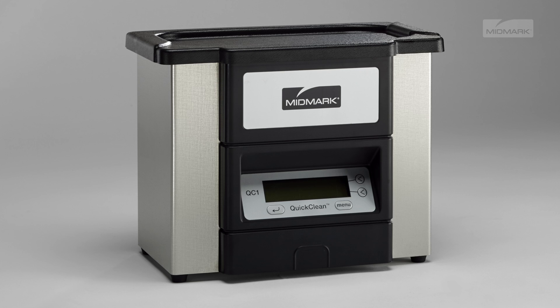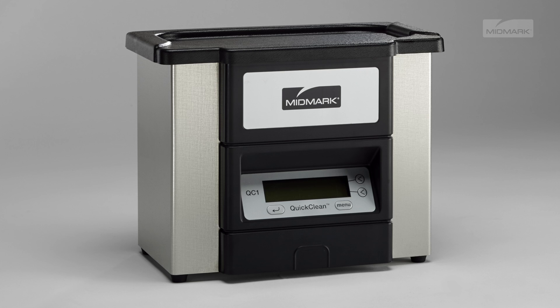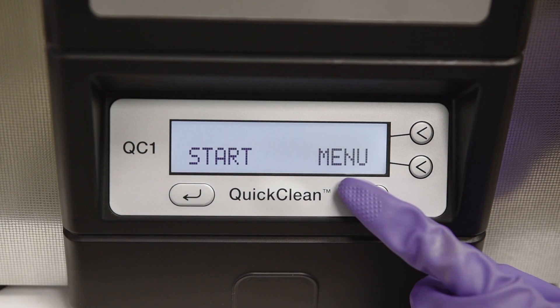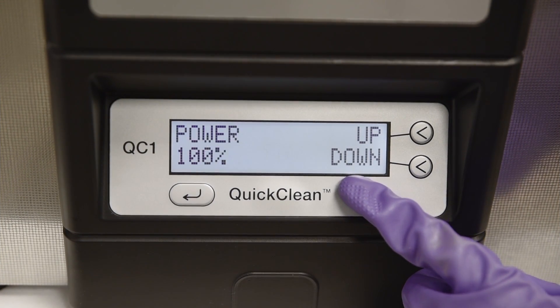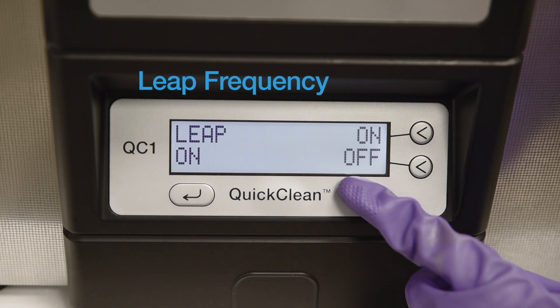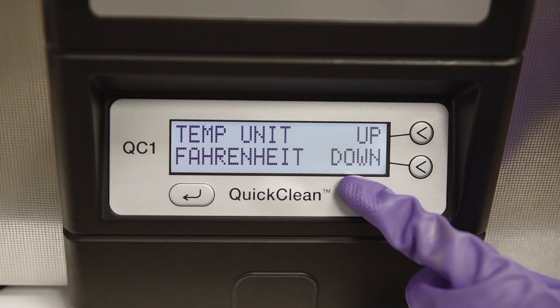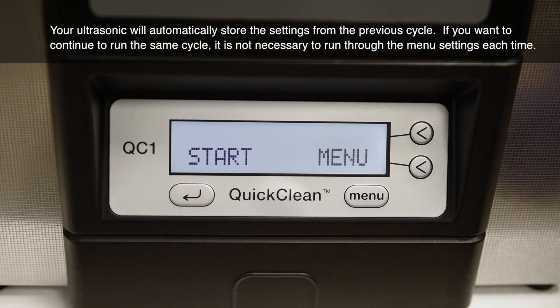Your QuickClean comes with a number of different cleaning parameters that can be adjusted to fit your office needs. To access the menu options and scroll through the various settings, press the menu key. The available settings include cycle time, power level, degas function, leap frequency, and temperature units of measure. All these settings can be easily adjusted via the menu screen.